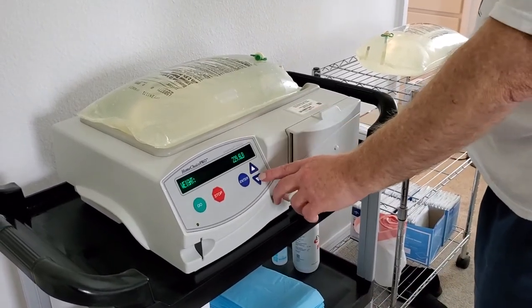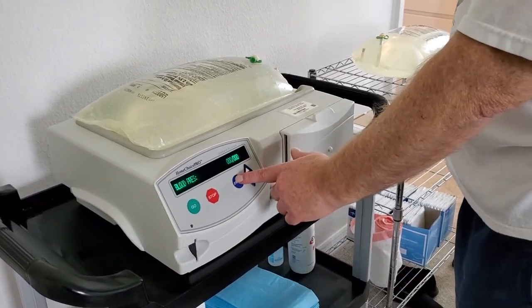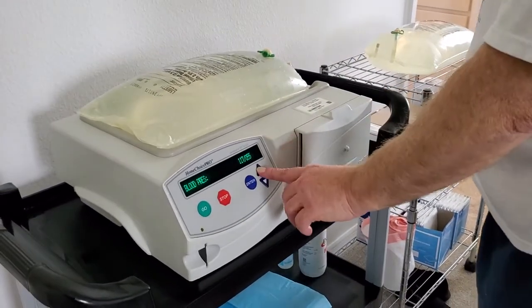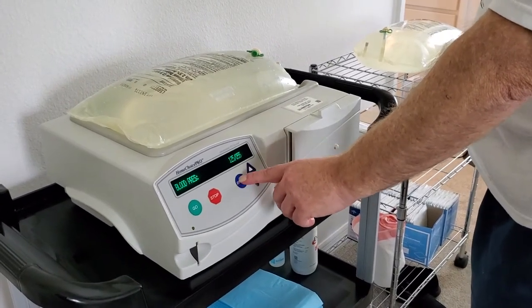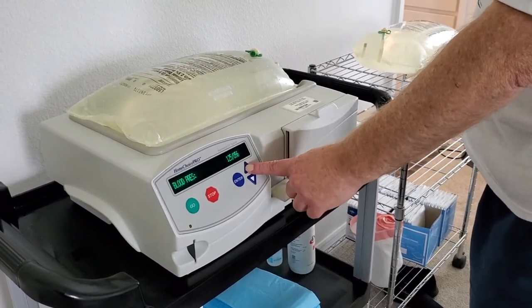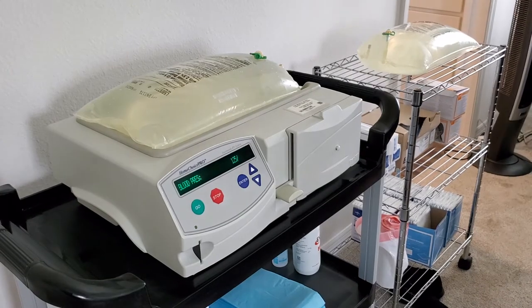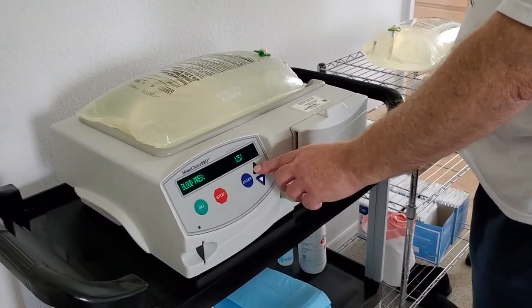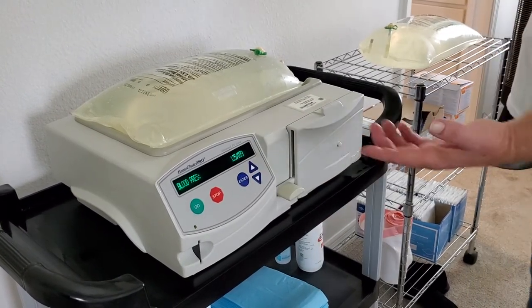Now I want to go to the next phase — I hit the down button and it's asking me to put in my blood pressure. I hit enter. My blood pressure this time is 125 over 73, which is pretty good today.